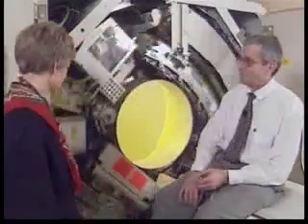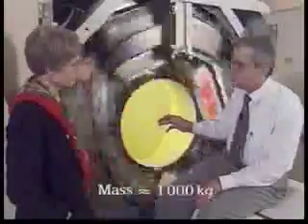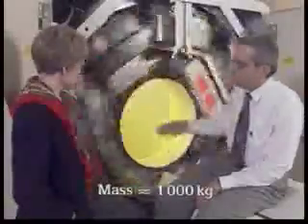Look at this. Continuous rotation of the gantry was impossible before the development of electrical slip rings for getting power into the X-ray tube and data out of the detectors. The weight of the rotating parts adds up to almost a tonne, and we can accelerate the machine to an angular speed of one rotation in three quarters of a second. The radial acceleration at this speed is four to five times the gravitational acceleration.